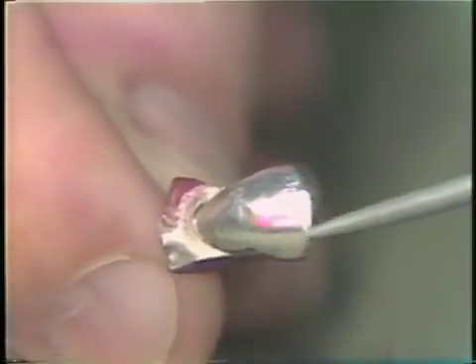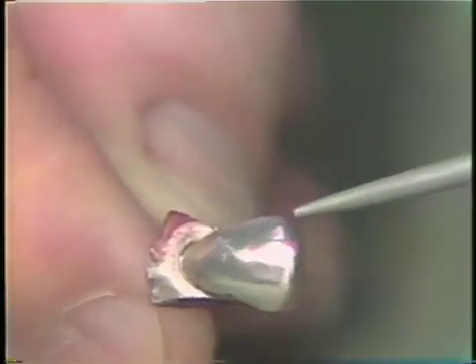When the rough finish has been completed, we should have very smooth margins, and the only differentiation that we should see is the differentiation in color and no catches.